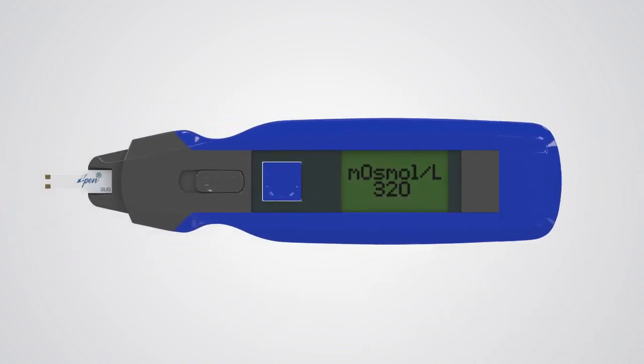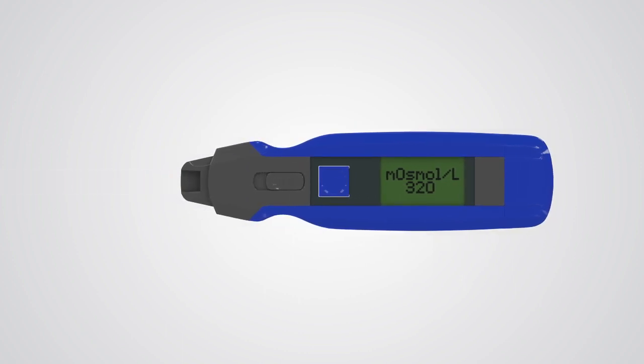Once you've recorded your results, eject and discard the sensor. The sensors are for single-use only.